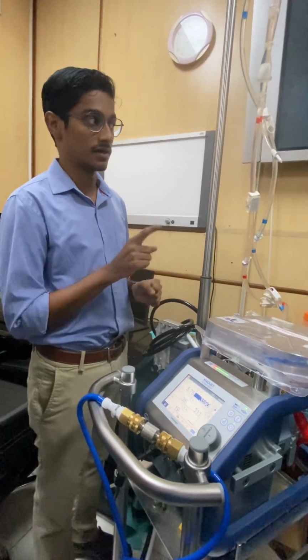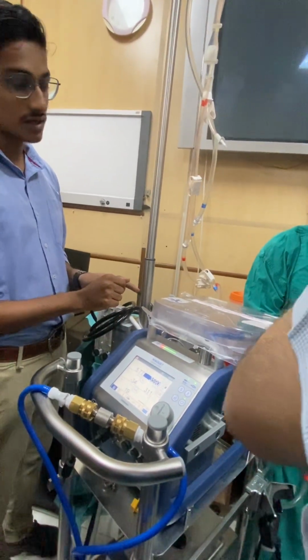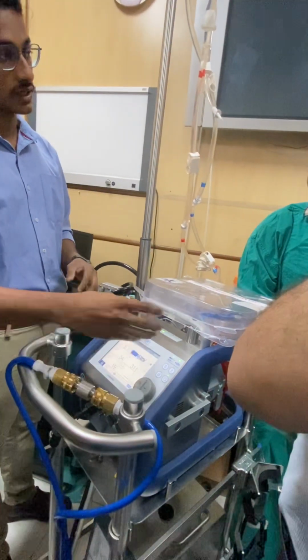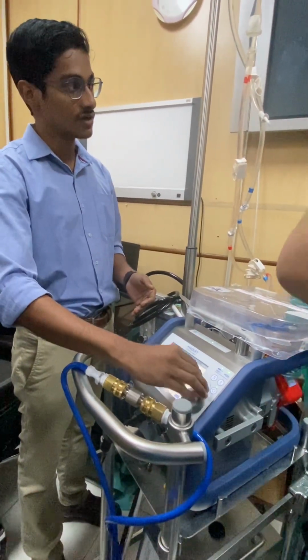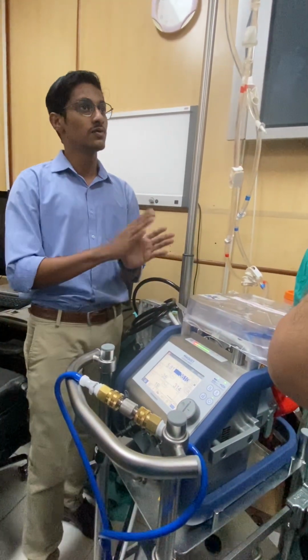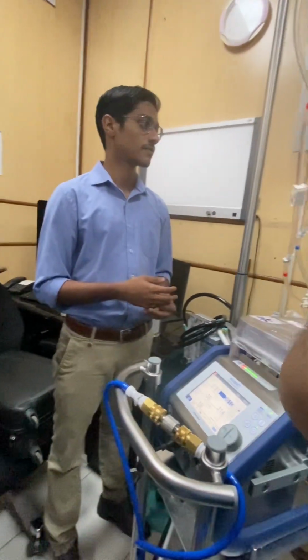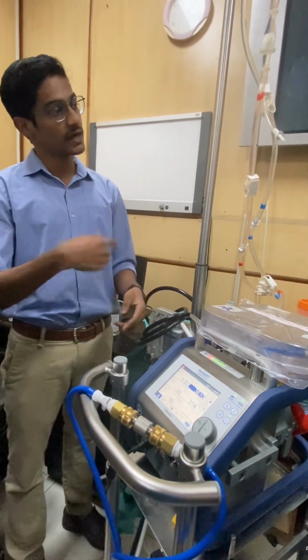It is successfully done. Now sometimes what happens is that even after doing this, as soon as you remove the override, it will give bubble detection. In such a situation, again override and circulate it at a higher RPM. For example, 4000 RPM for 1 or 2 minutes, and then again remove the override. This way, you can make sure that your priming is correct. If at a higher RPM the buzzer comes again, just override and do it once more.